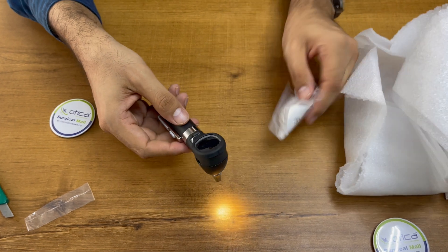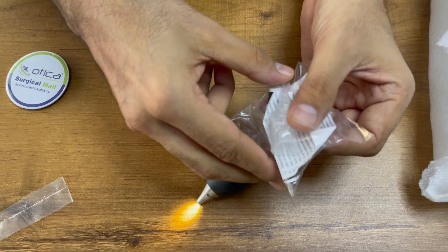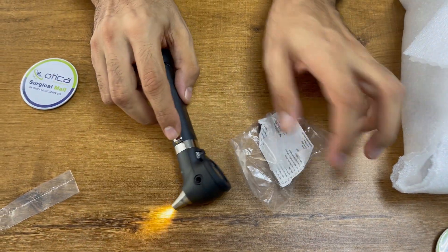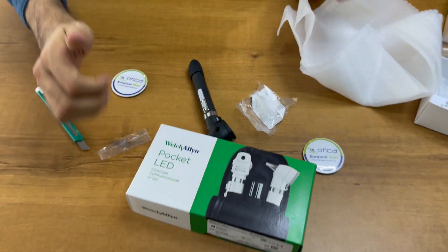This is the ear specular. The company has started giving transparent speculars for a better view. This is how this device works. Thank you.